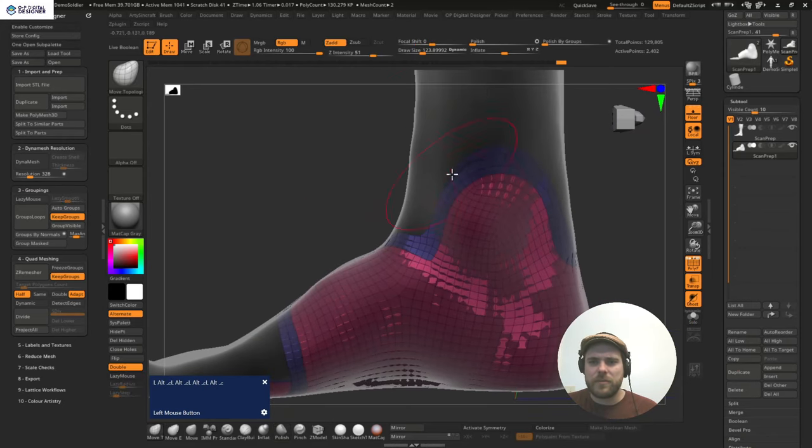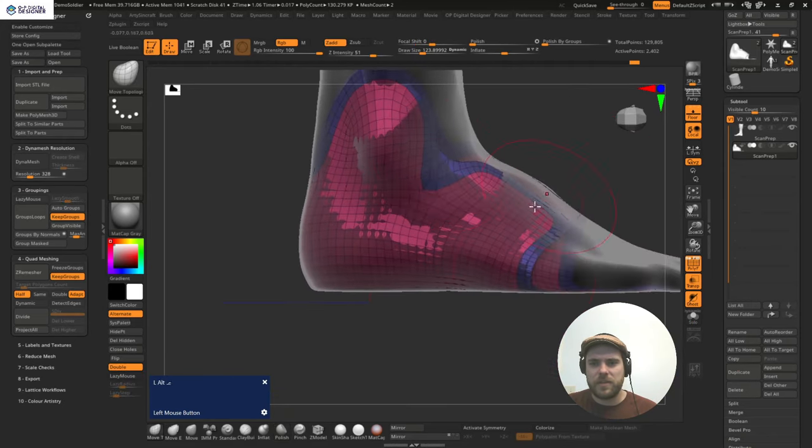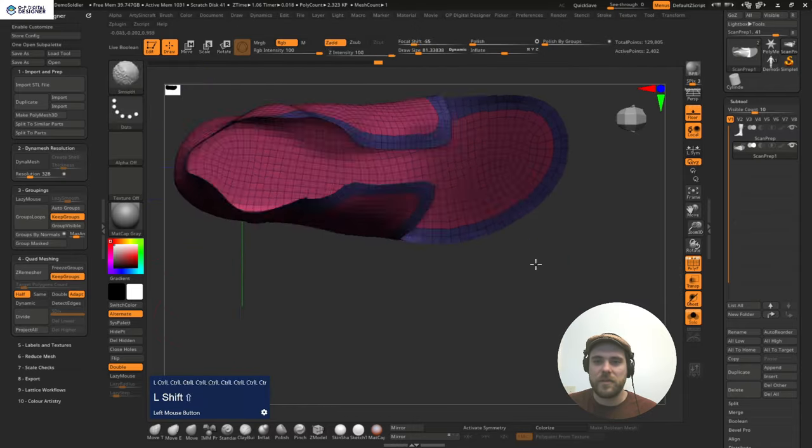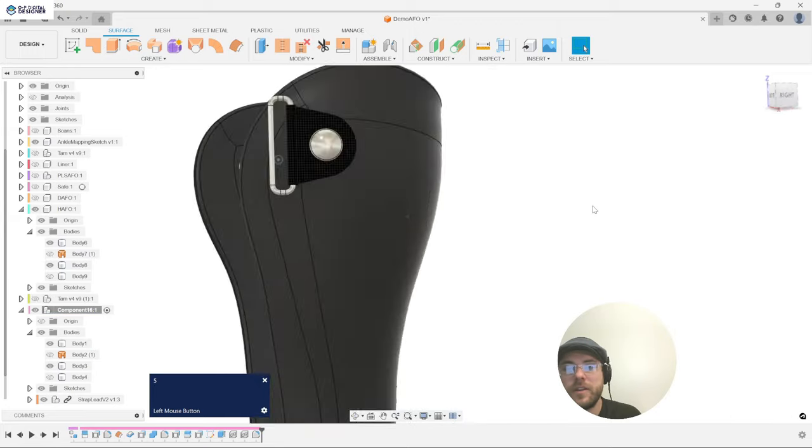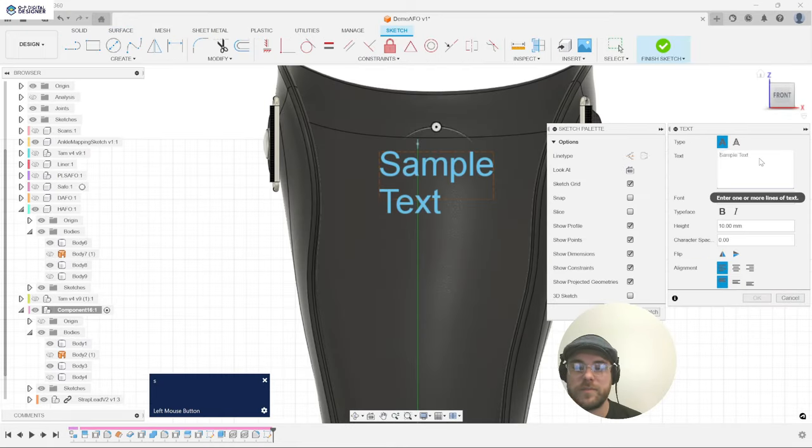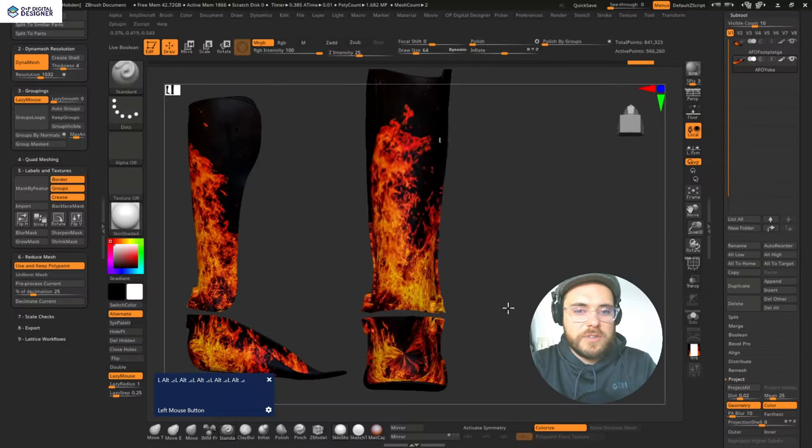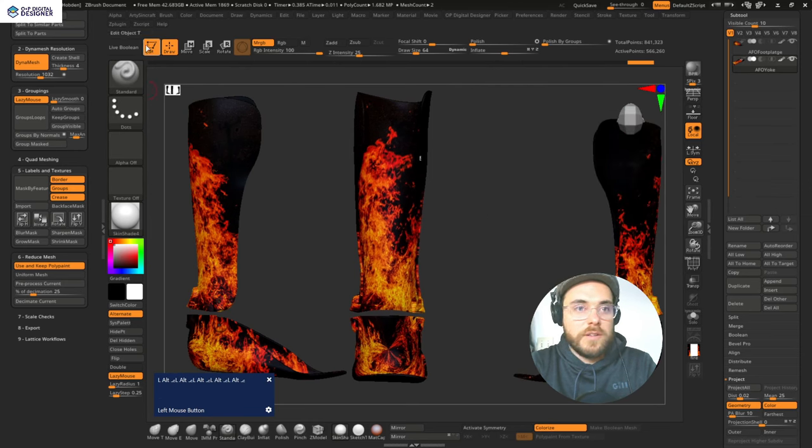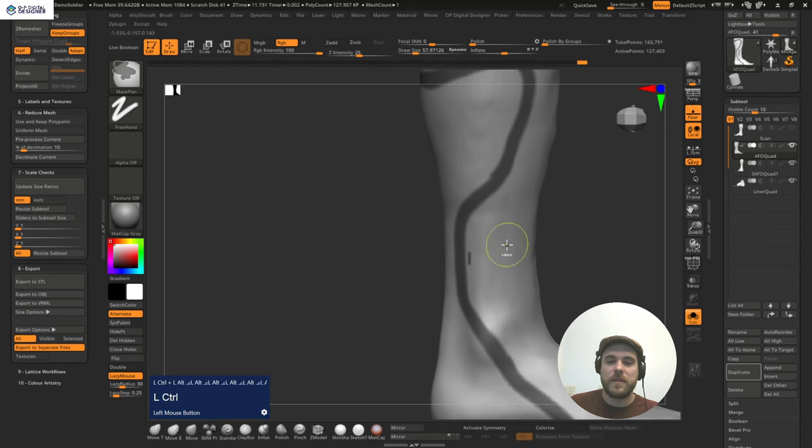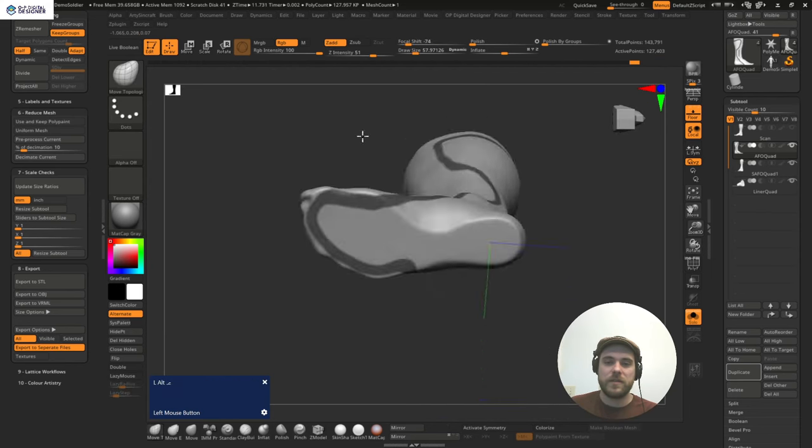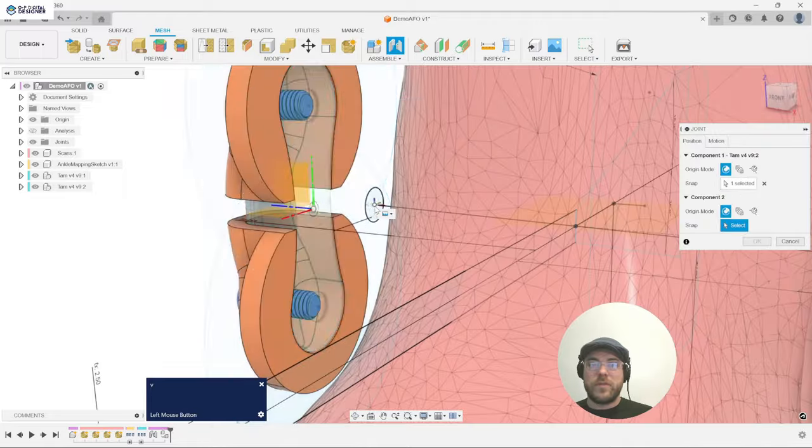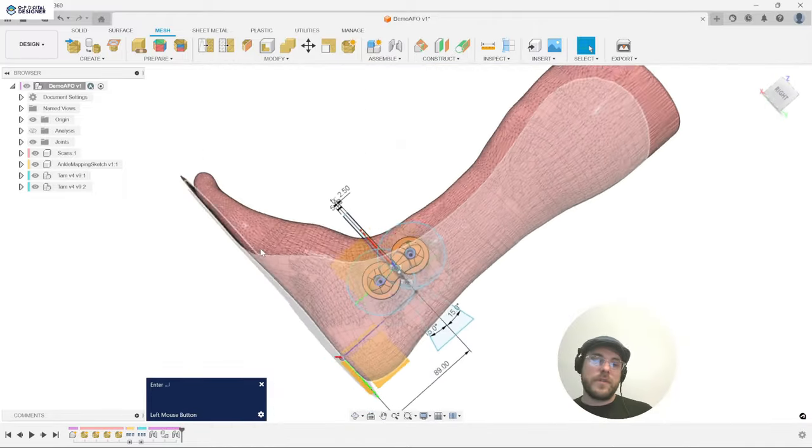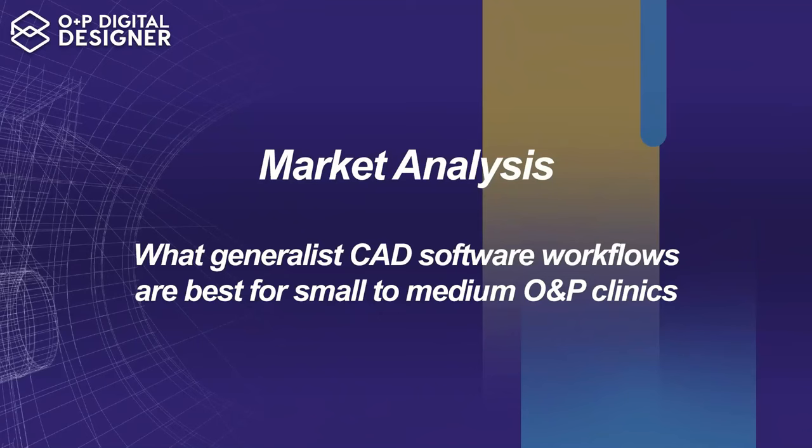This ABCOP accredited course gives you everything you need to start creating patient-fitting 3D prints from 3D scans using Autodesk's Fusion 360 and Maxon's ZBrush, one of the most powerful mesh editing tools in the 3D software market today. By the end of the course, you will have everything you need to make five different styles of AFO devices, each following a consistent and unified design methodology, so you learn the right way the first time and only one method for a variety of device applications.